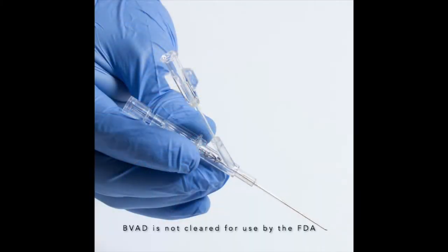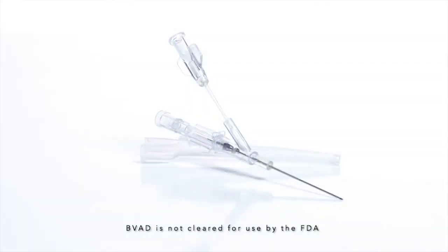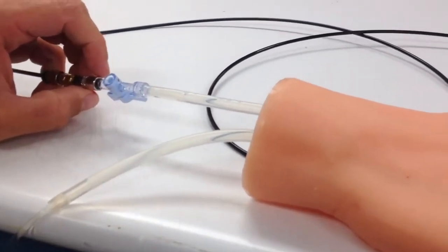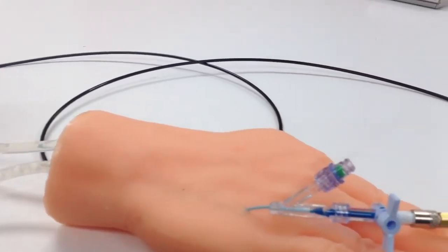Introducing the BVAD, Bifurcated Venous Access Device. This is a dual-lumen peripheral IV catheter which gives us the flexibility to infuse fluids at the same time we're getting uncontaminated blood draws for blood tests and blood sugars.